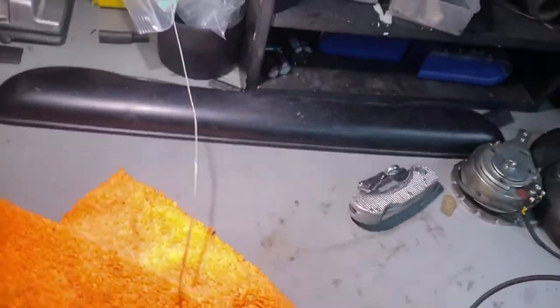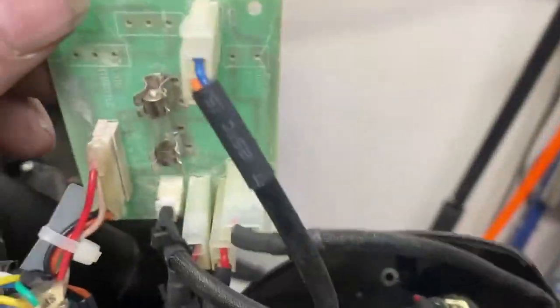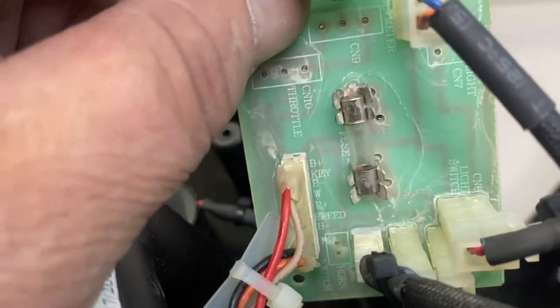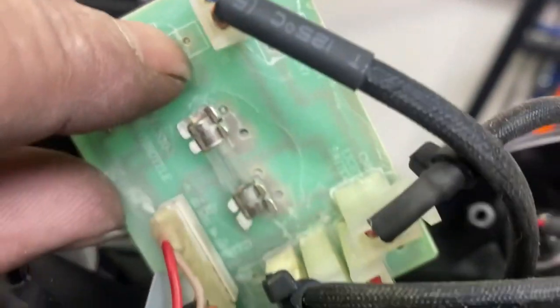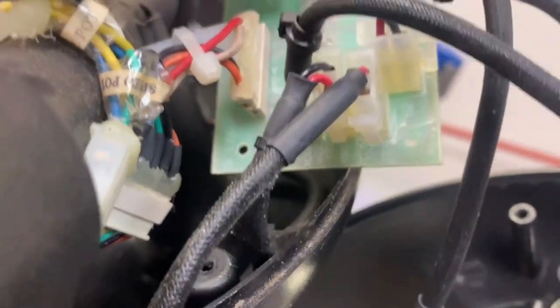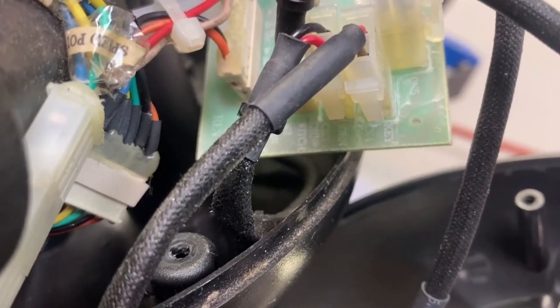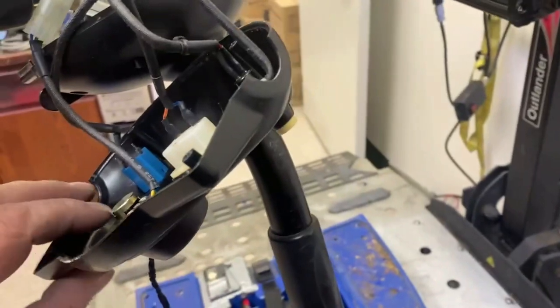I've re-plugged everything back in. Luckily everything's marked on the circuit board for you — you've got voltmeter, light switch which is actually your error light, and then key and horn. There's a horn switch at the bottom, and your main harness wire goes in there. Let's see if that's cured the error problem — which it has.